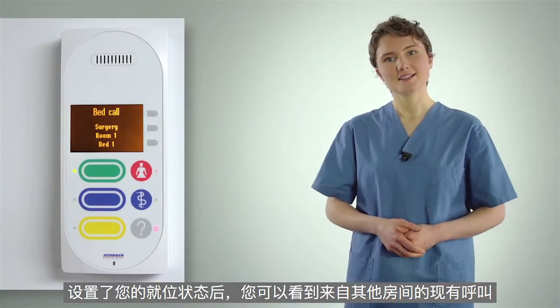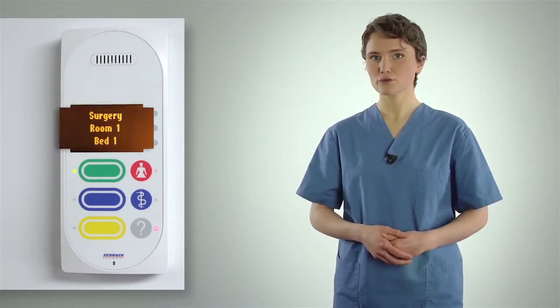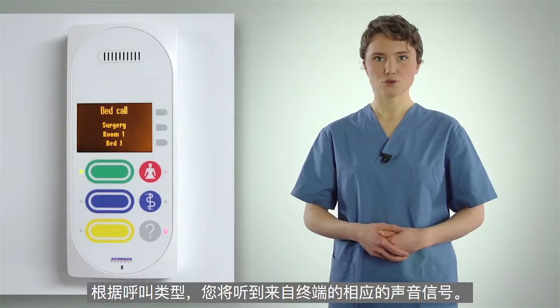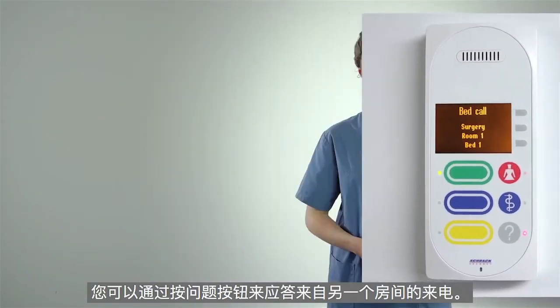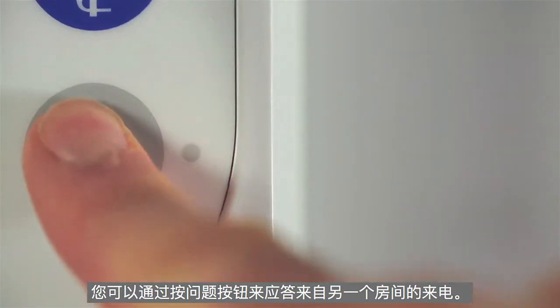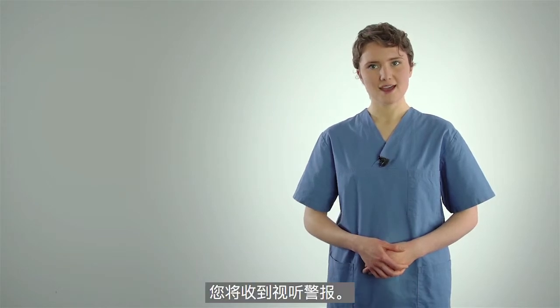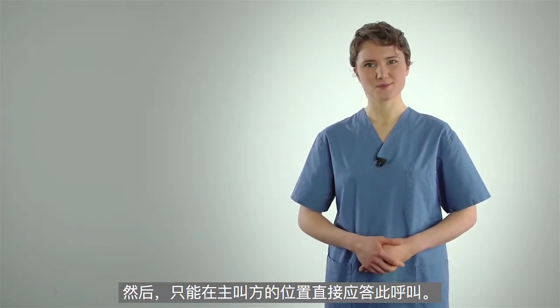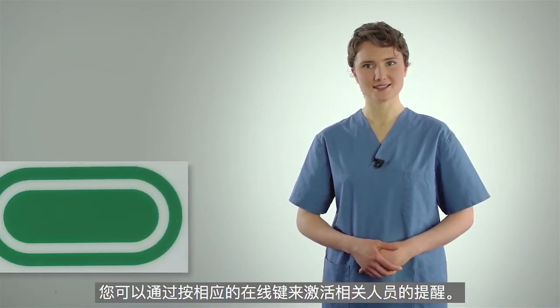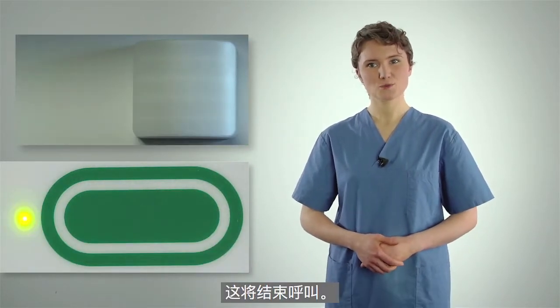Having set your presence, you can see pending calls from other rooms on the display with the call type and call location. Depending on the call type, you'll hear a corresponding acoustic signal from the terminal. You can answer an incoming call from another room by pressing the question button. If no voice connection can be established to a calling station, you'll receive an audio-visual alert. This call can then only be cancelled directly at the caller's location. During the conversation, you can activate a reminder for the staff concerned by pressing the appropriate presence button. This will end the call.